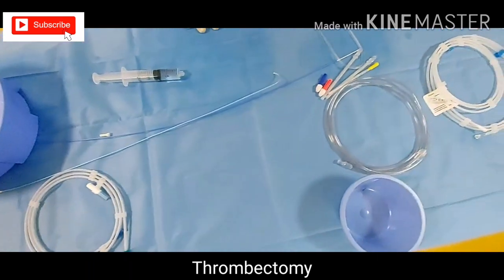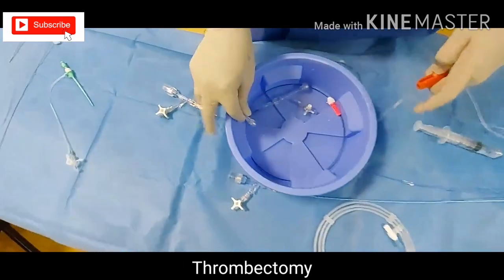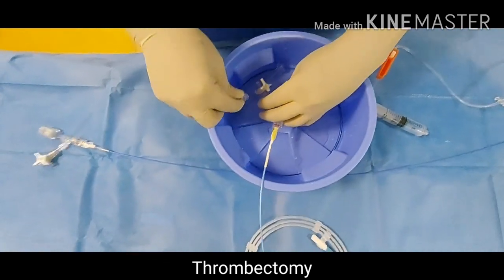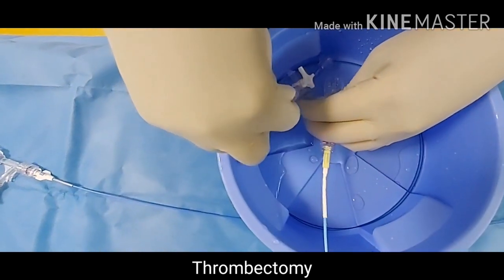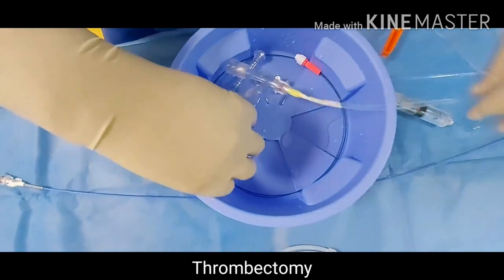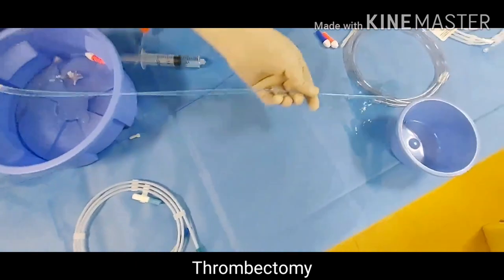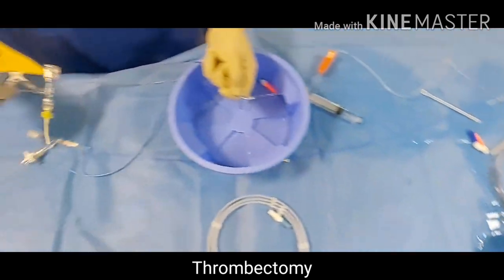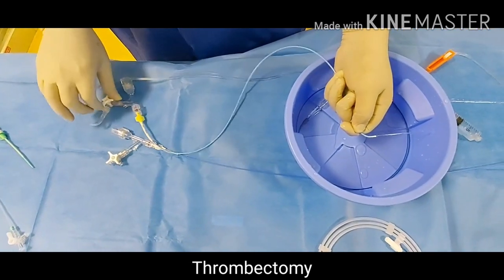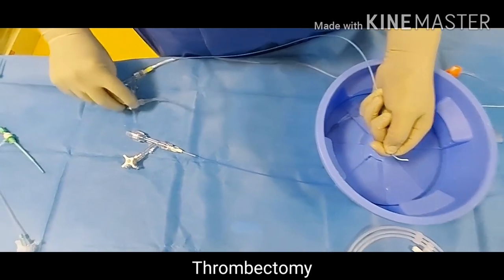Always close it. While pouring water, dip it and hold it — you see — then flush the catheter. You can see the catheter is now fixed properly. Close it. Later on we can control the flow.